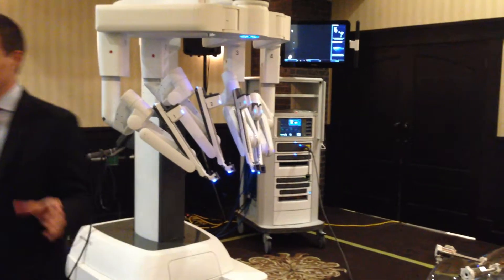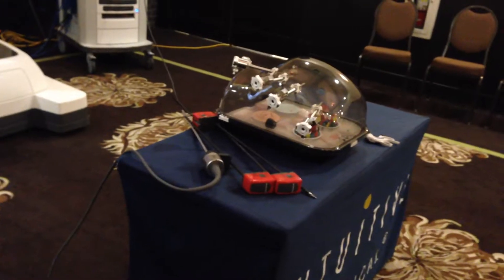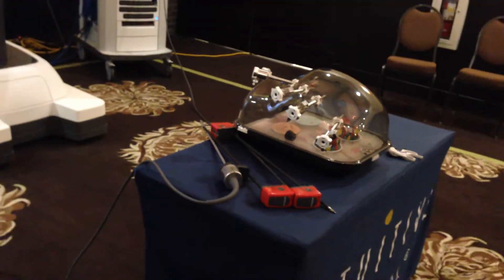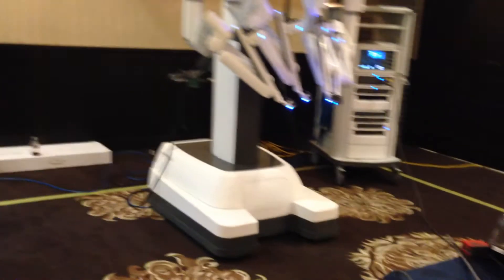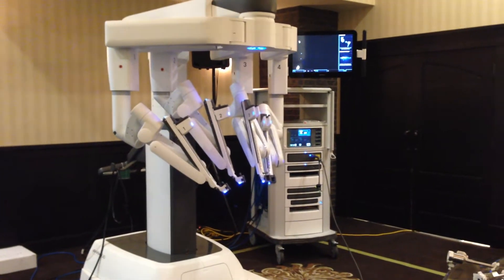The camera is actually as small as your laparoscopic camera, and the optics are actually on the tip of the endoscope. What it enables is the ability to port hop to any of the different ports during the procedure and get a different perspective and different angle.